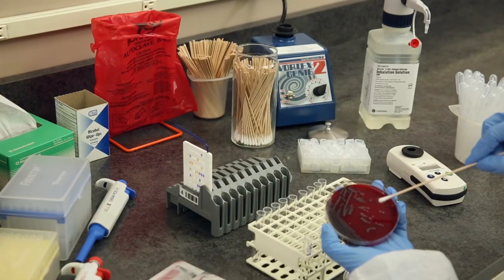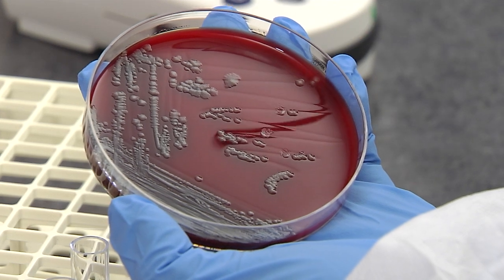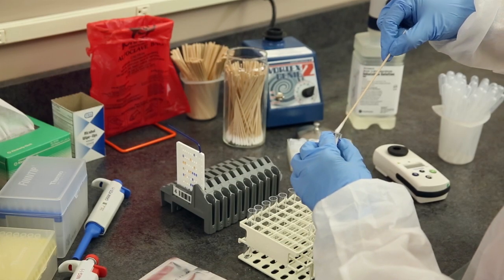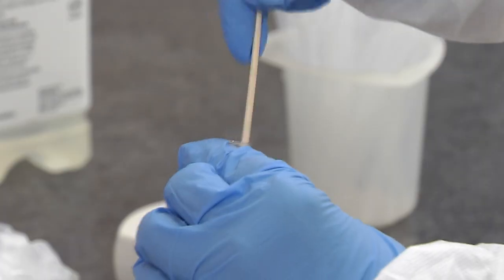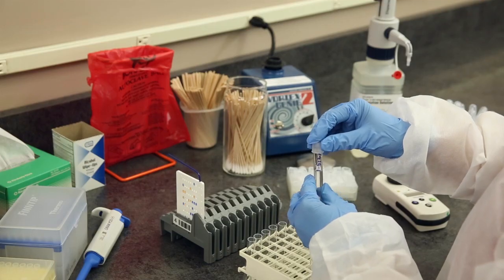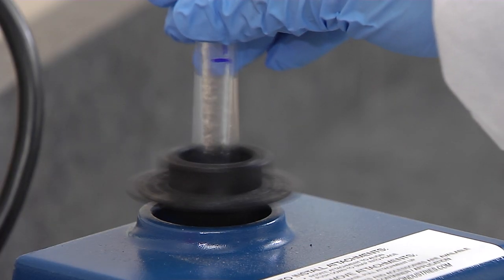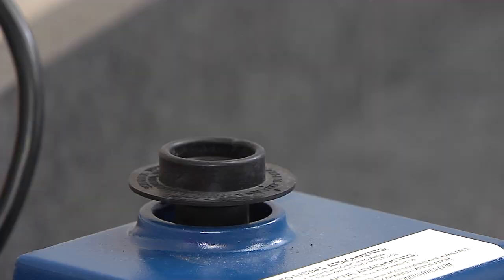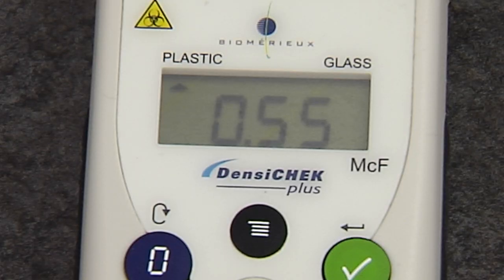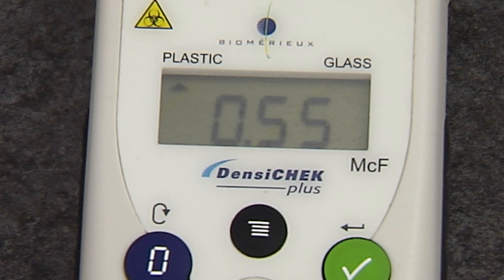Use a sterile stick or swab to transfer morphologically similar colonies to the saline tube. Avoid picking up any agar with the stick or swab. Mix well to prepare a homogeneous suspension. If necessary, cap the tube and vortex thoroughly.